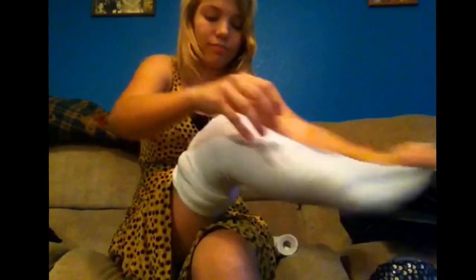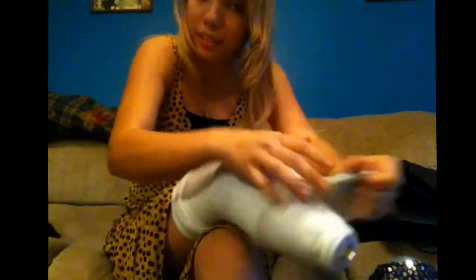I've got way too many socks. For some reason the coloration has gone down because I haven't been active. You guys can see I have a bone sticking out on the side right here. Before it would be black.